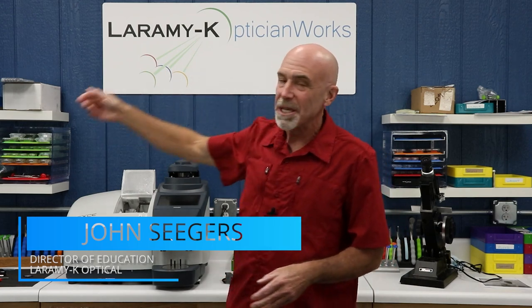Hello. I would like to welcome you to the Laramy-K OpticianWorks Training Center, where today we are going to look at applying tolerance for horizontal and vertical prismatic imbalance. Let's just begin right there, shall we? Let's simplify the language a little bit and say that we're just going to look at the standards for PDs and OCs.